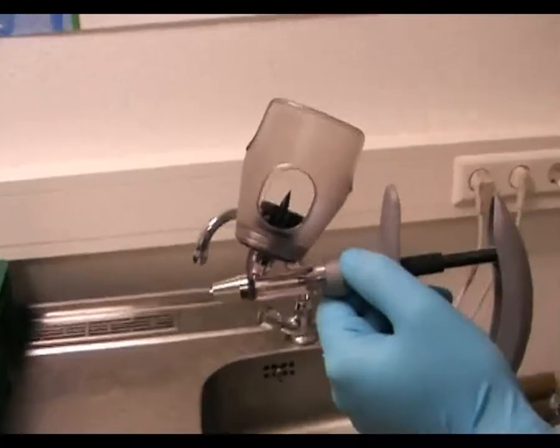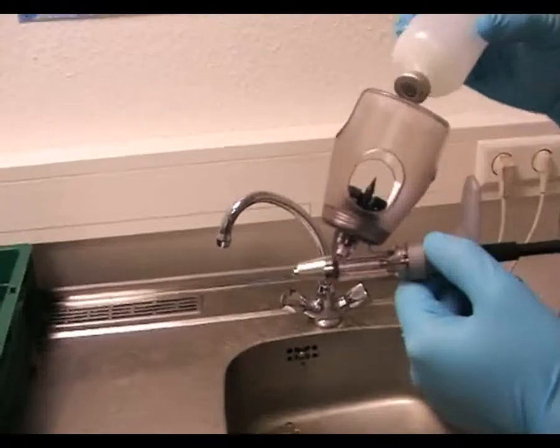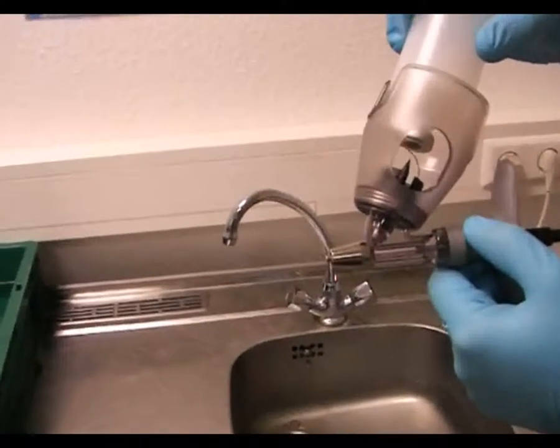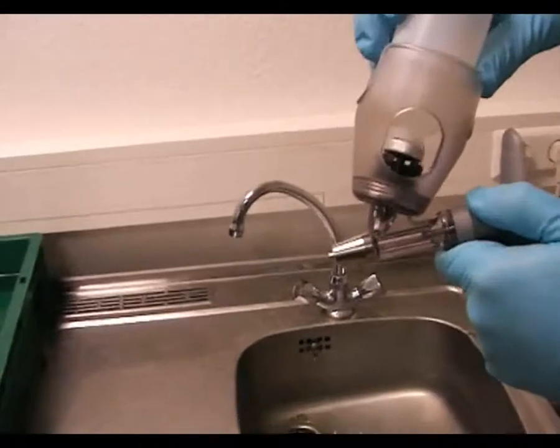Die Flasche wird mit dem Gummi in die Mitte des Spikes, der durch ein Sichtfenster leicht zugänglich ist, hineingedrückt, bis diese hörbar einrastet.